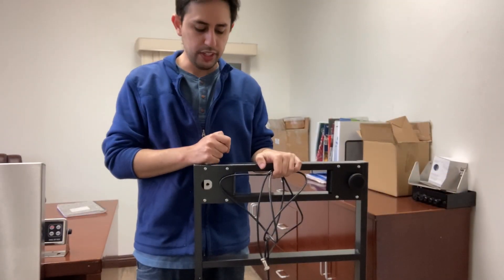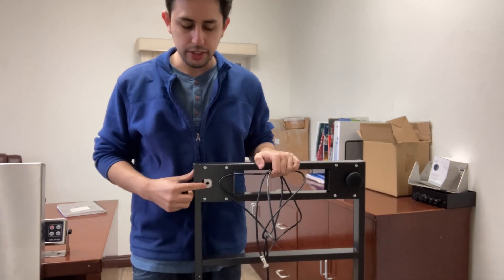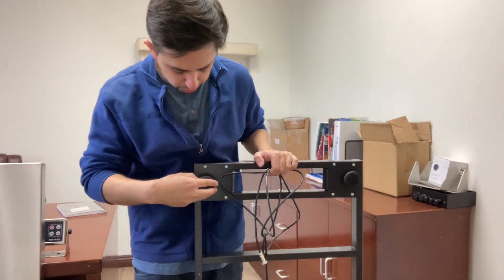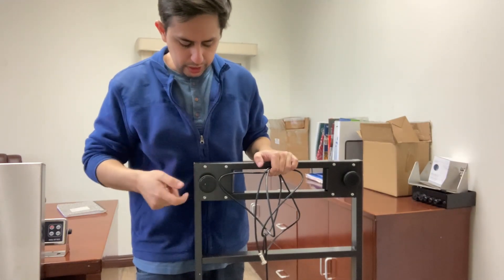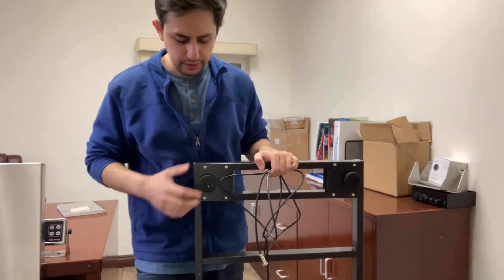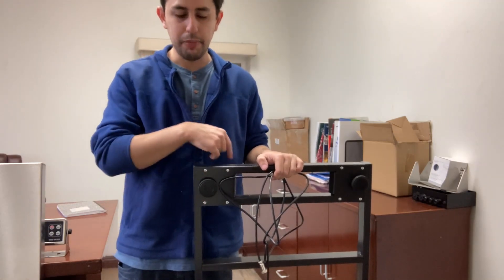This is my VET scale. This is the metal platform that comes in and you'll notice there's a hole right here. This is where you take in your feet and you screw into the load cell. I recommend screwing it all the way in. Do it for all four corners and then place it down.